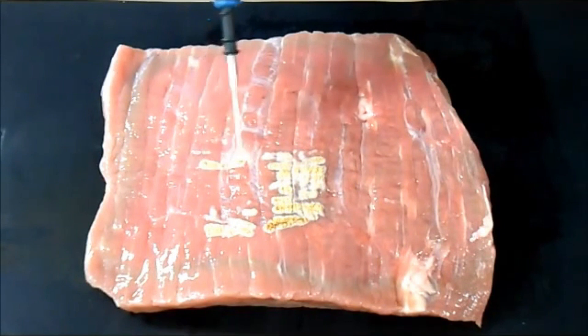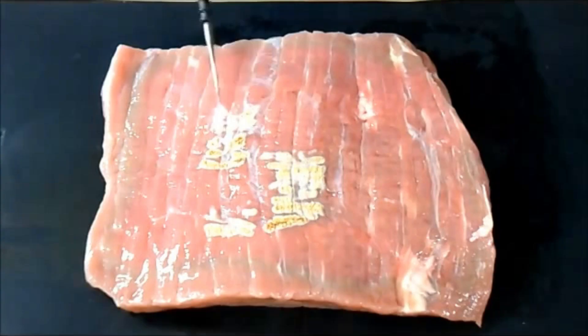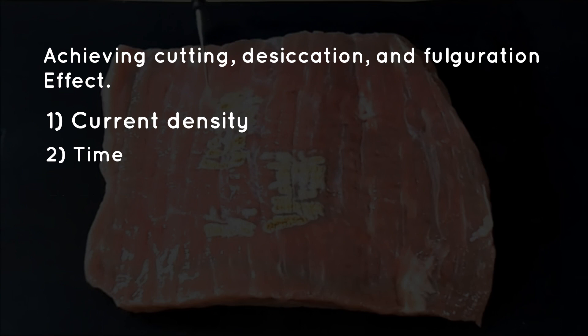Three tissue effects are possible with today's electrosurgical units: cutting, desiccation, and fulguration. Achieving these effects depends on the following factors: current density, time, electrode size, tissue conductivity, and current waveform.